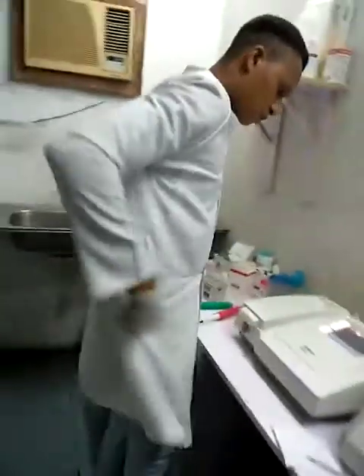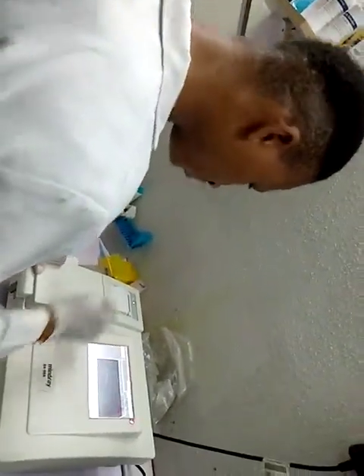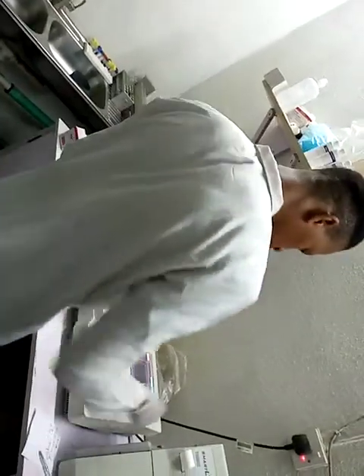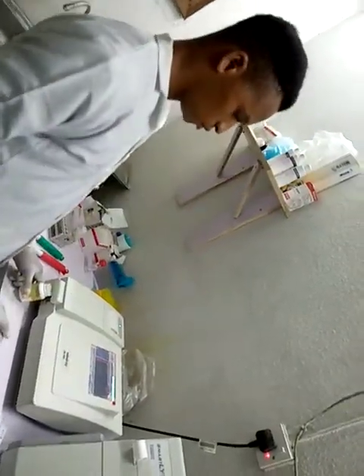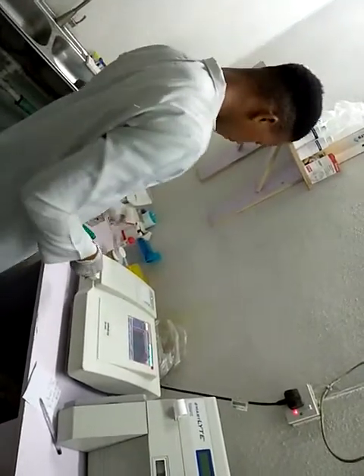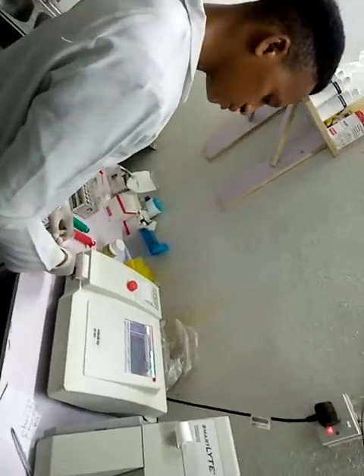Go to my bicarbonate in the machine. Click on my bicarbonate. I wash the probe as usual and also run my water blank to blank the machine.